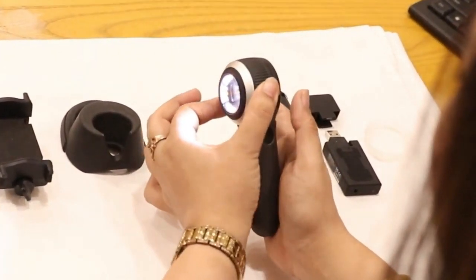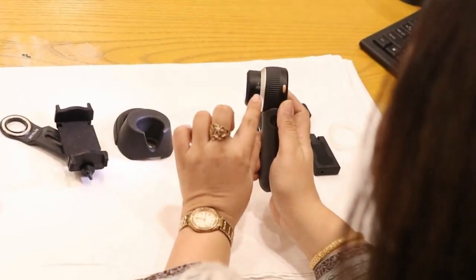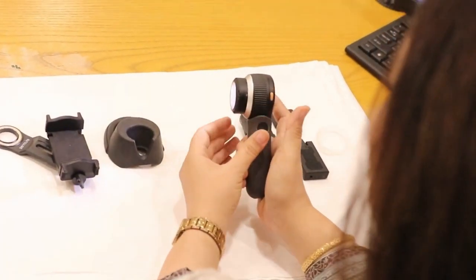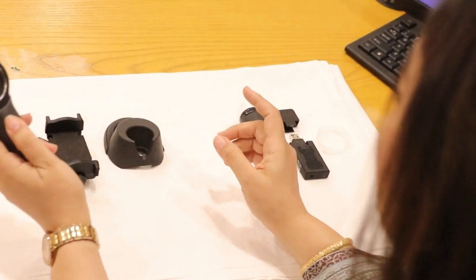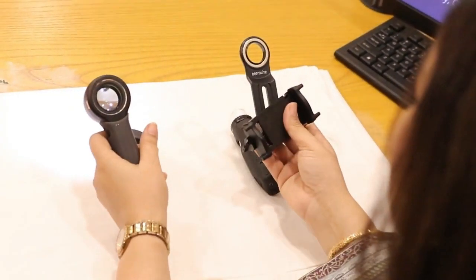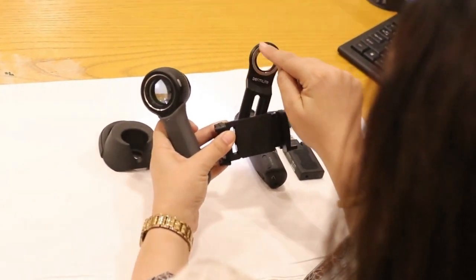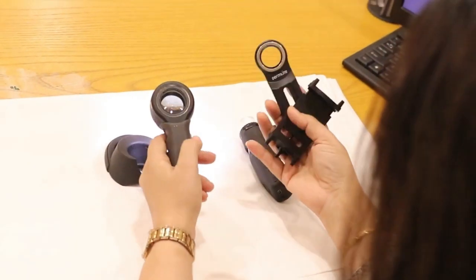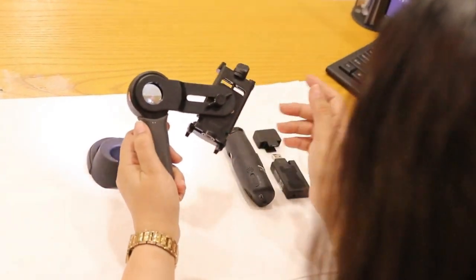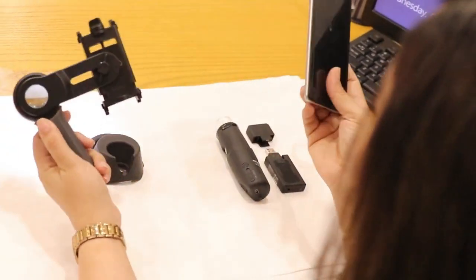There is a spacer on the front. It is capable of going inside the scope and can also be taken out. There is the Mark 0 over here — once we put it on the Mark 0 it is good to go to be used with the cell phone. With the cell phone, there is an adapter. The adapters are widely available in the market and come in many types. All of them have got a magnetic ring on them, which makes them able to be attached with the dermoscope very strongly. Then you can put up your cell phone camera and capture the images.